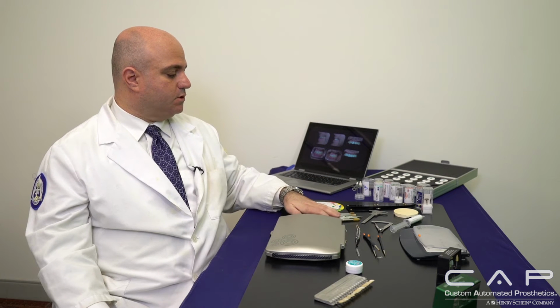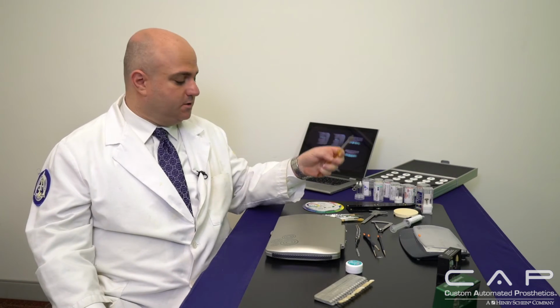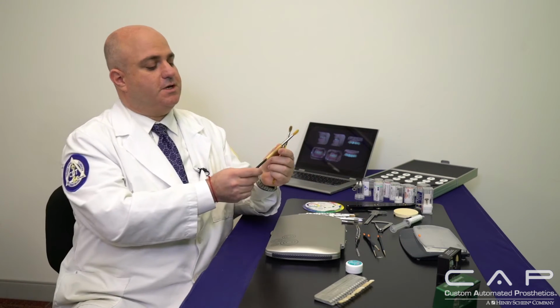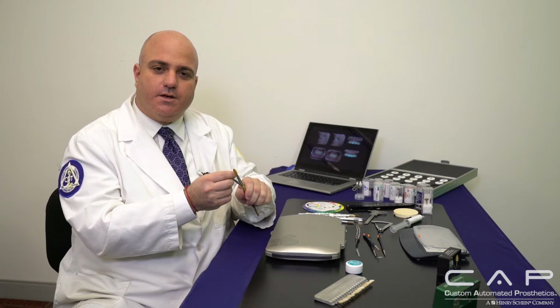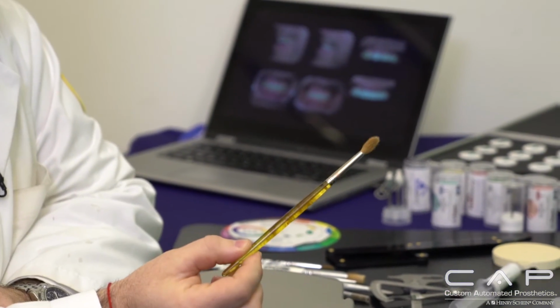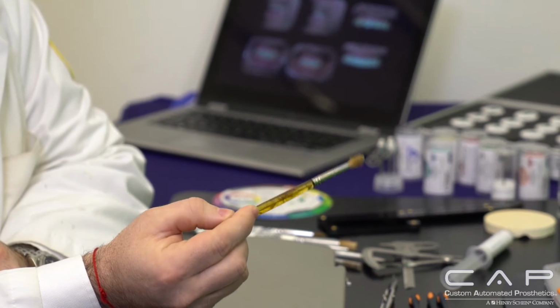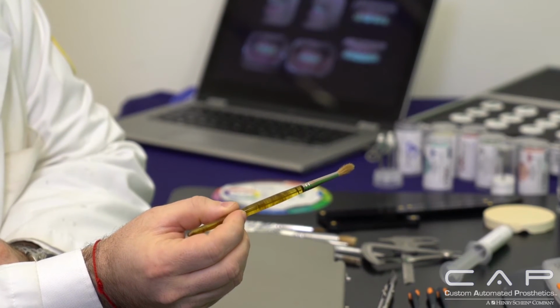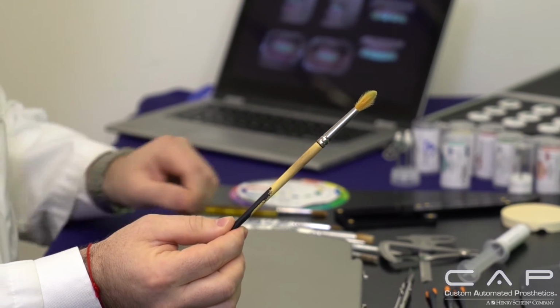As far as brushes, there are multiple brushes that we can use. I use, believe it or not, this one, which is probably about 20 years old, as well as this one, and you can tell it's been well used, because you want to use a high quality brush. As craftsmen, the better the tools we have to perform our craft, the better it is. There's less frustration, and it really becomes like a second hand or second nature. So you can just reach out anywhere on your bench, grab your tool, and achieve exactly what you're trying to achieve.